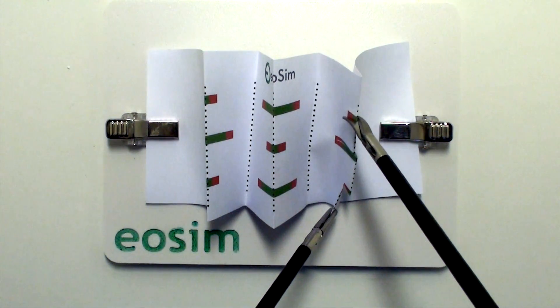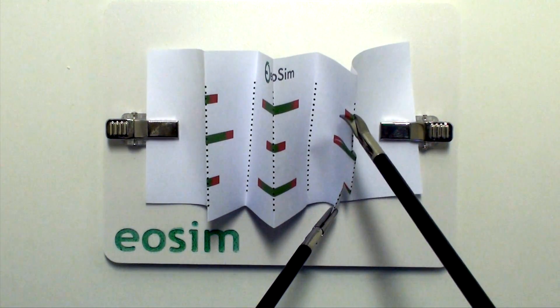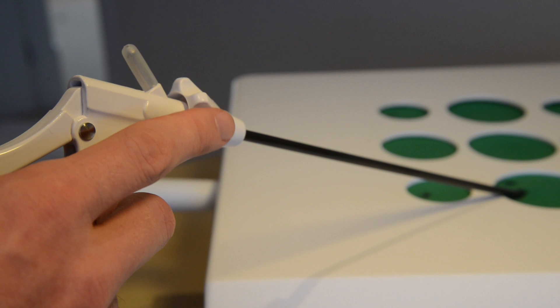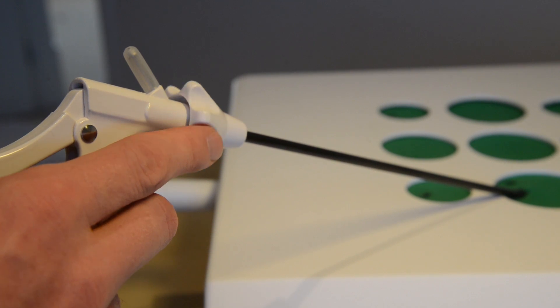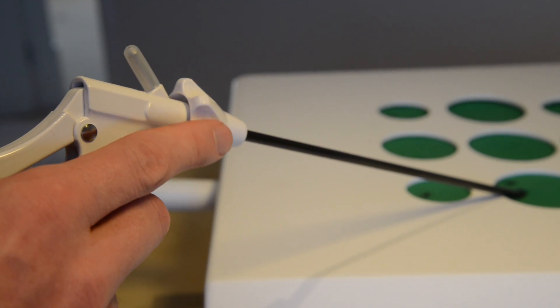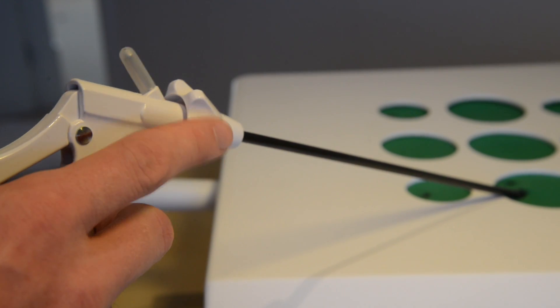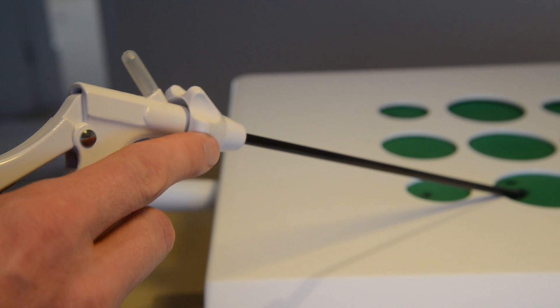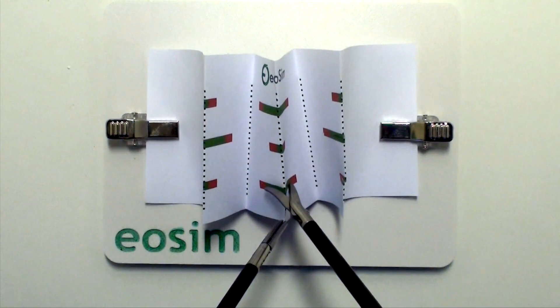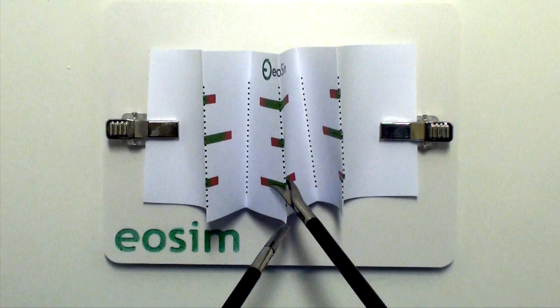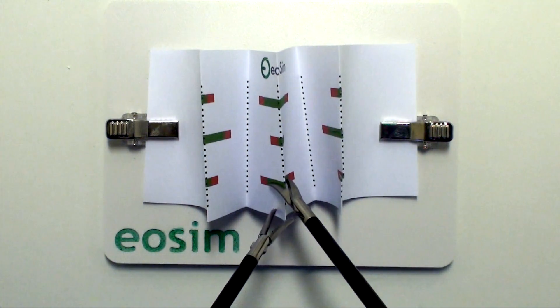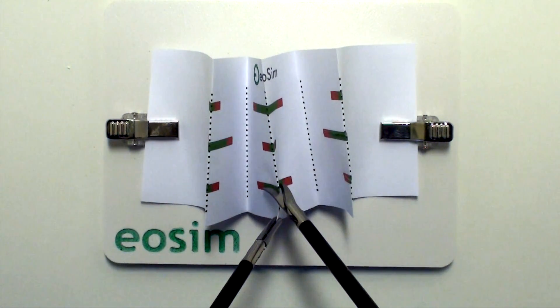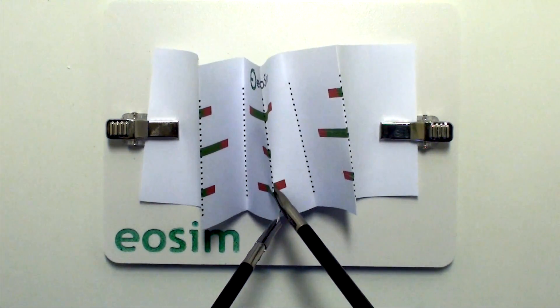It is important in this task to rotate the angle of the blades, and you can achieve this by rotating the bevel at the hub of the instrument.